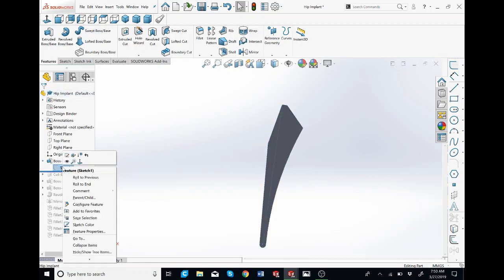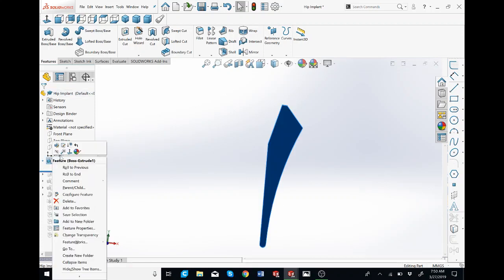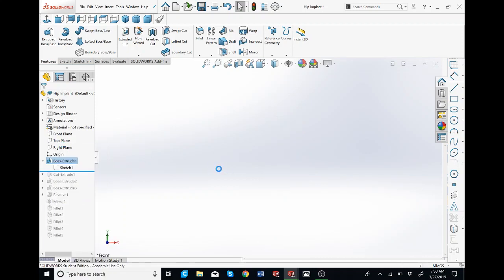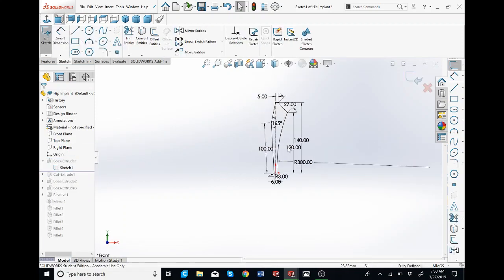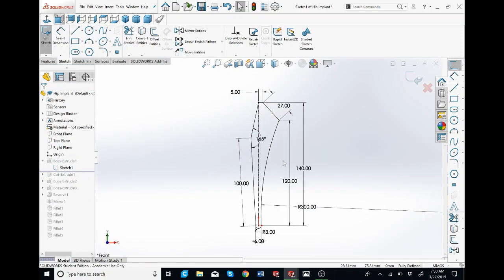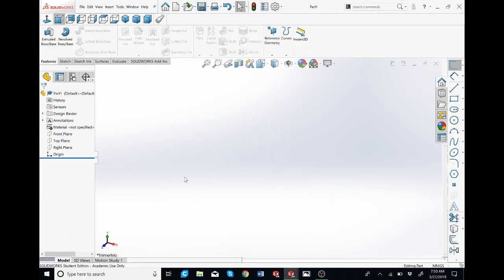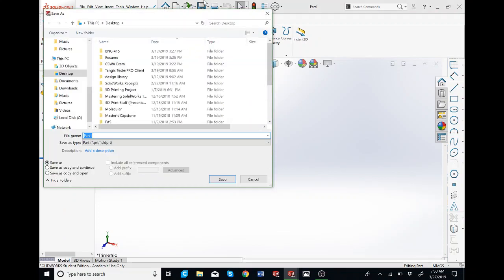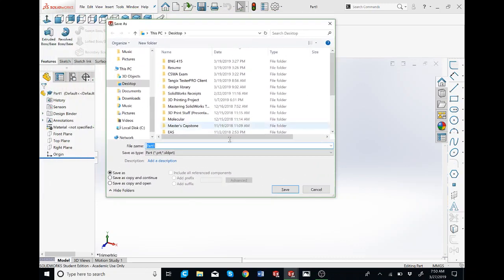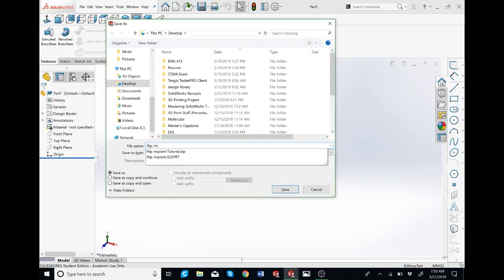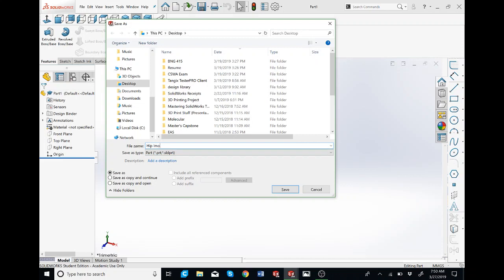I'm going to right click on the sketch. You can also right click on the sketch and just click on edit sketch. So these are all the measurements. Feel free to pause the video and try for yourself, but we'll be going over it. So now I'm going to my blank file. I'm going to click control S to save it. You can also click on the floppy disk. I'm just going to type in hip implant 2, just because I already have one.